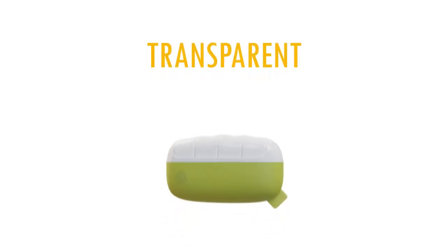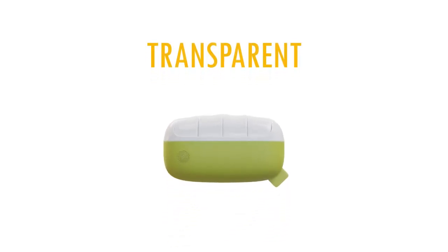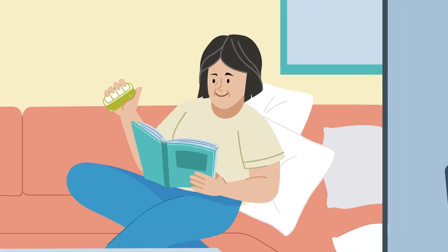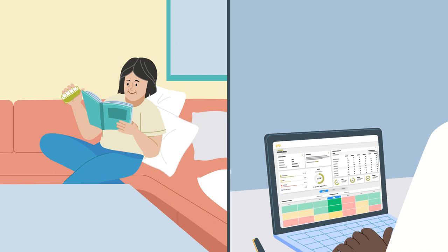This makes the process transparent and trackable. Use of Grip is cost-effective and often covered by insurance, making Grip testing more seamless and convenient than ever before.